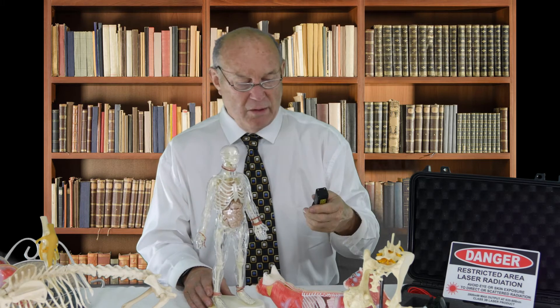So what we do for the human being — and this is a recommendation for the human being — is that we need to laser it for a longer period of time before we give up. We also found that there is a group of various protocols that we find effective for the shoulder of the human being.